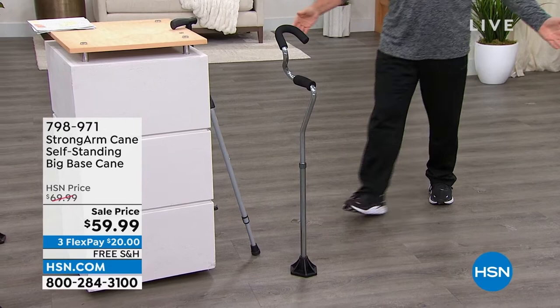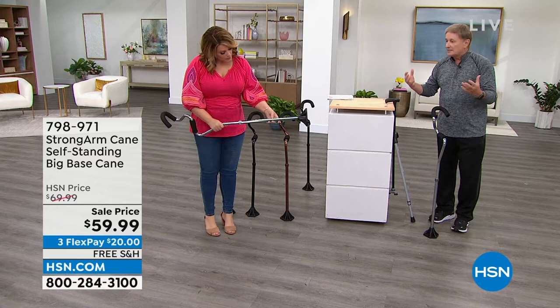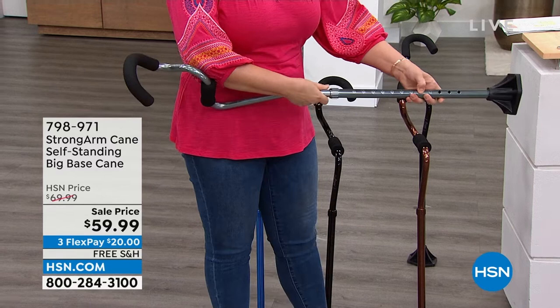Many times the cane is the pain — because you get so... What's your mom's first name? Nelia. Hola, Nelia! Nelia, this is for you. And you know, that wide base gives you stability and balance as well.